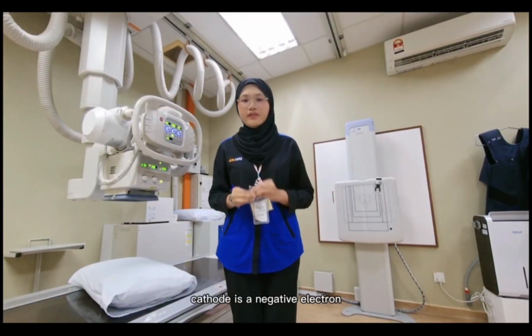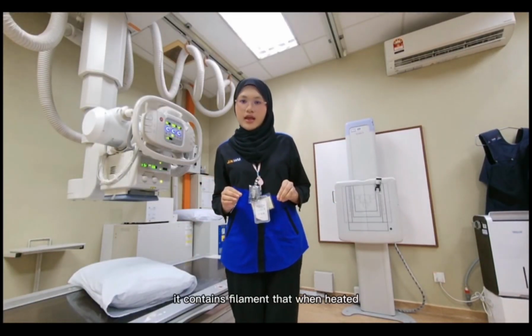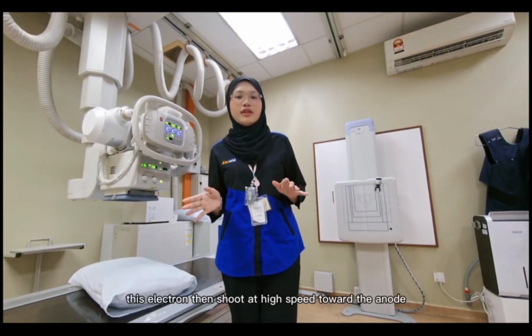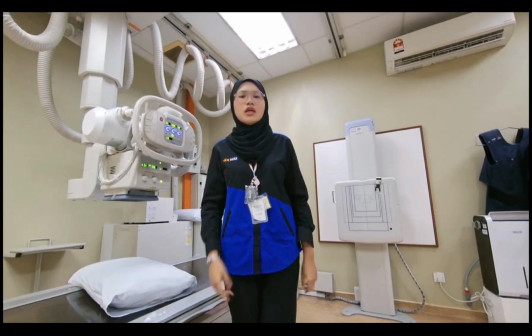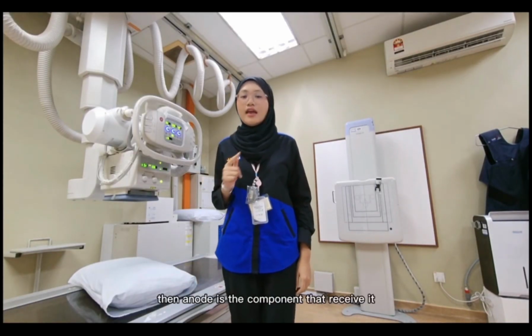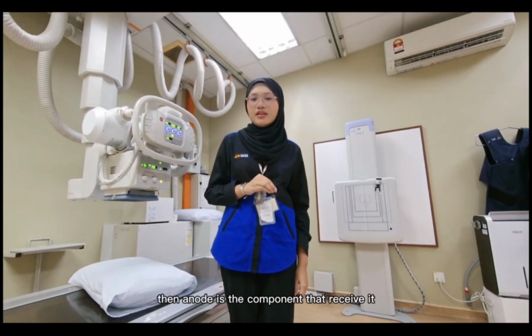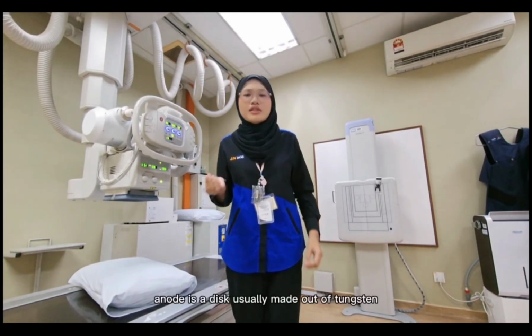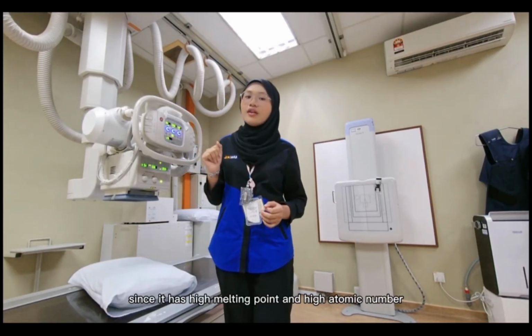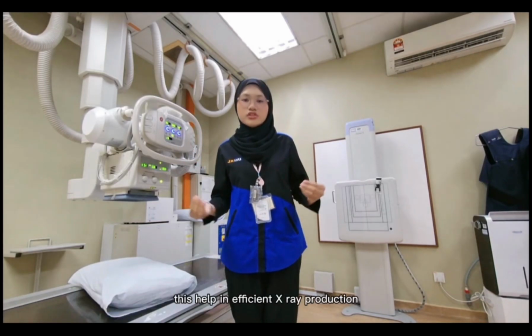The cathode is the negative electrode. It contains a filament that, when heated, will release electrons. These electrons then shoot at high speed toward the anode. Since the cathode is the component that shoots negative electrons, the anode is the component that receives them. The anode is a disc usually made out of tungsten, since it has a high melting point and high atomic number. This helps in efficient X-ray production.